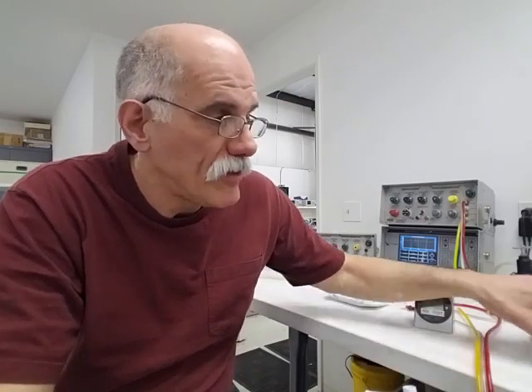Hi, I'm Brent, and I'd like to give you the facts about ventilators. I'm not a pulmonologist, but I have designed ventilators for clients, including ones like this.